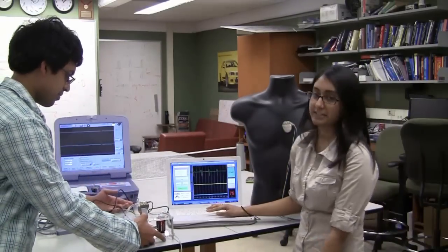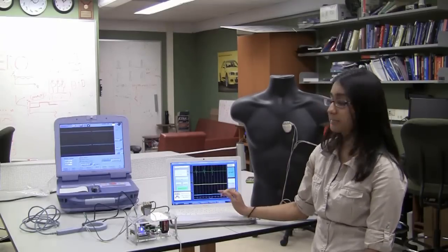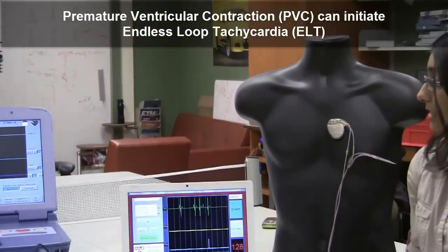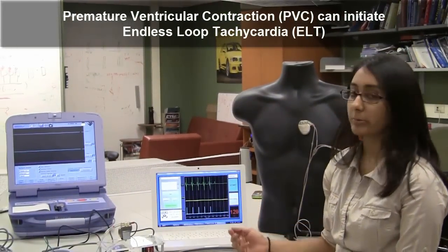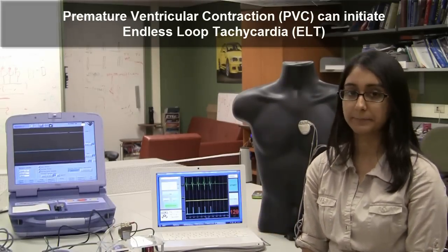Our user interface here allows us to program the heart into various conditions from the simple drop-down menu here. Right now, the heart is programmed to beat normal and healthy. However, when we connect the pacemaker to it right now, we can see that the pacemaker actually causes a problem in this healthy heart. And it is this kind of problem that we want to catch before pacemakers are implanted into real patients. If this were a real patient, this problem could be potentially fatal.